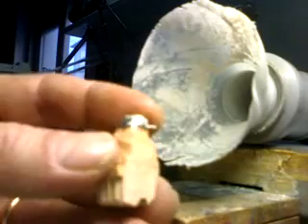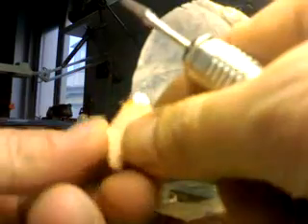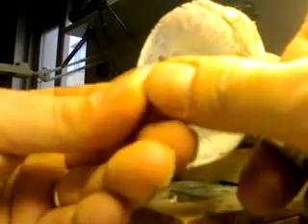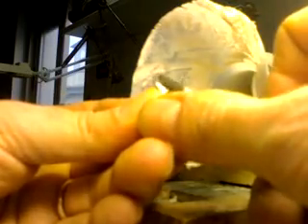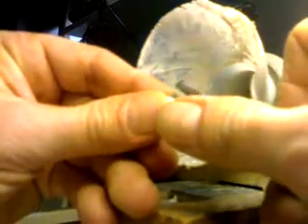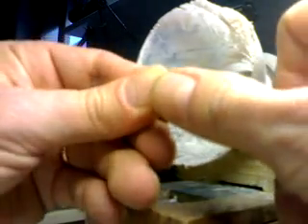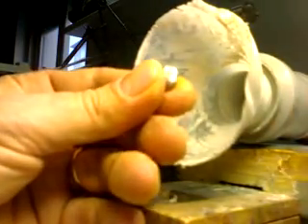I've been all around my margin with my carbide burr. Now I change burrs, and I will be working on the surface of my coping with this burr — always going in one direction, as you see.